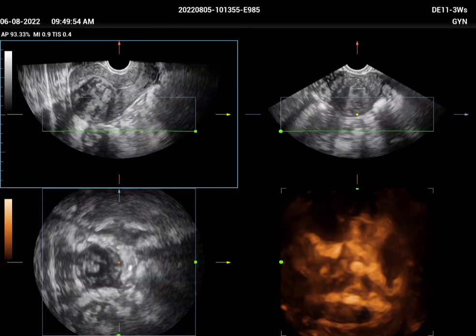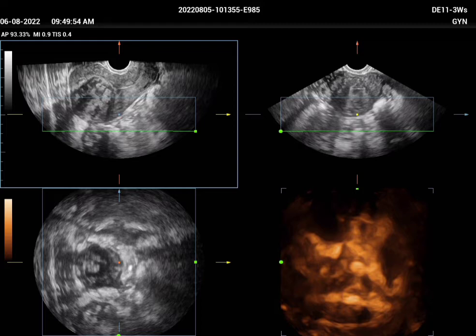When you do the 3D/4D, this image is not optimized yet. You can see a green line — this green line represents the camera line. The camera line should cross through the endometrium and also through the lesion. Here the camera line doesn't cross through the endometrium or the lesion, so we have a bad image and you can't see anything on the 3D/4D image.